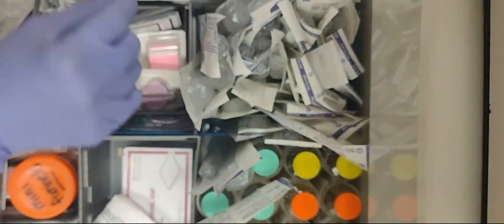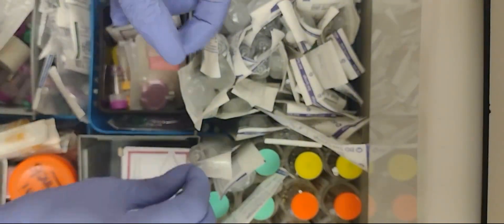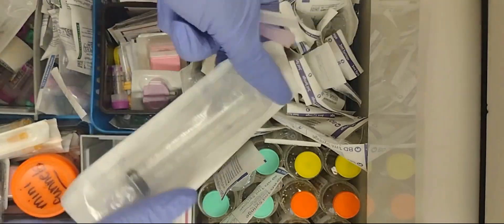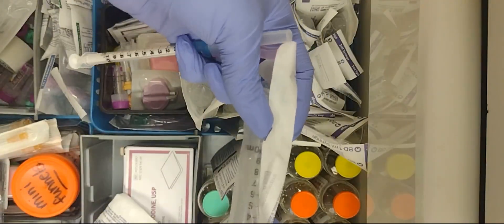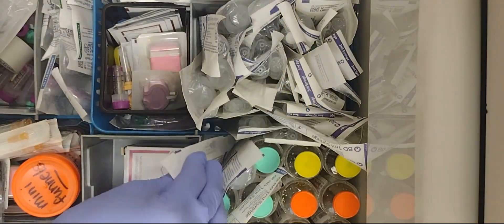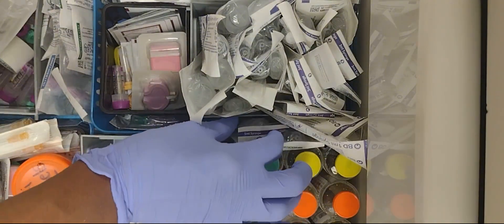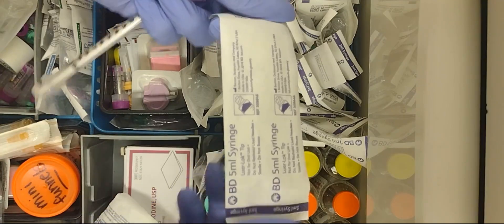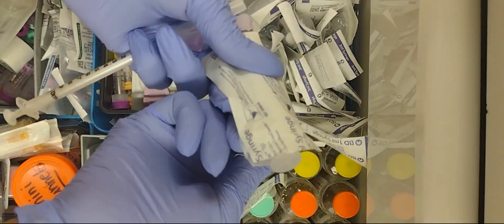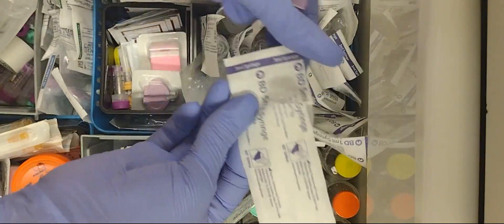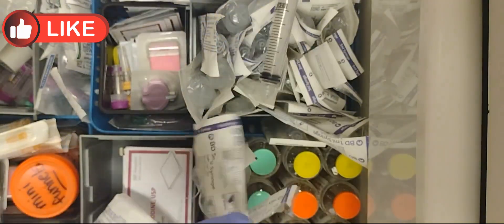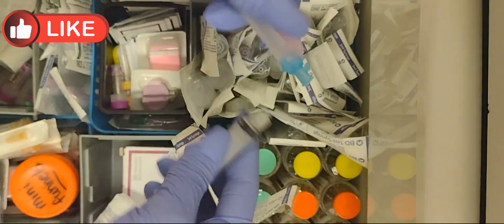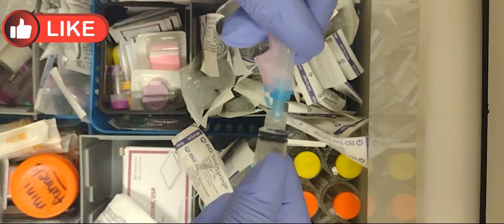This doesn't really have a groove because it's so small—it's a one milliliter. I'll probably be able to show you the grooves better if I get at least a 5 ml like this, a 10 ml. As you see, this is a 10 ml syringe, 5 ml syringe. So there you go.